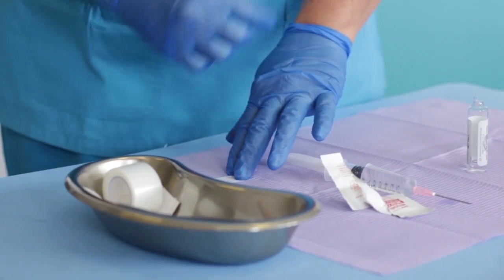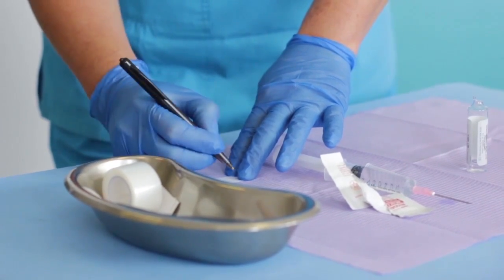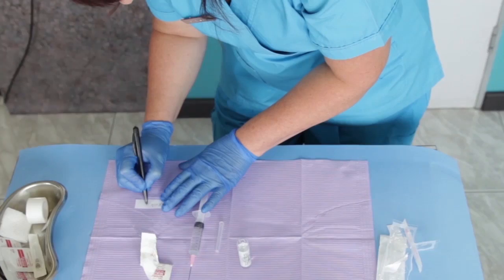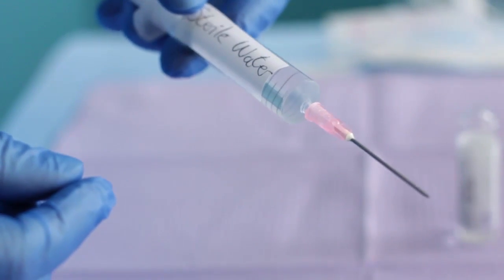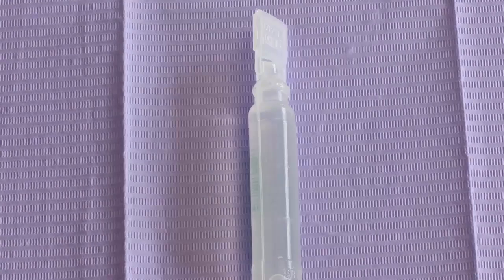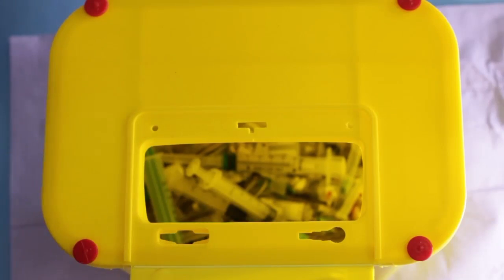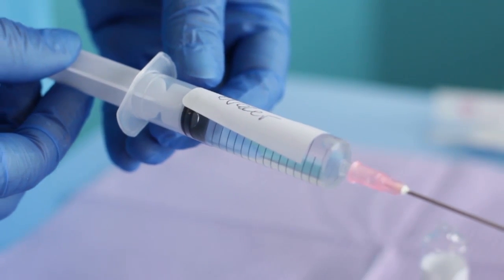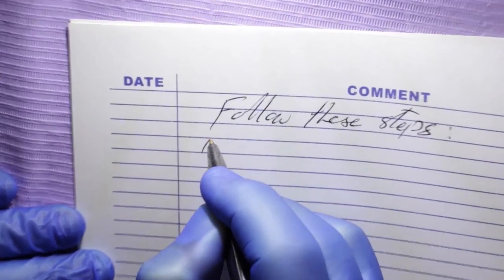In all cases when preparing syringes of different medications, or if you are not administering the medication immediately, clearly label the syringes opposite the volume markings. Write the type and concentration of medication — for instance, ketamine 1 mg per mL. You will need a 10 or 12 mL syringe with an attached 18 to 21 gauge needle, a 10 mL glass vial of sterile water or normal saline, a 10 mL plastic vial of sterile water or normal saline, alcohol wipes, a sharps container, sticker paper or a strip of strapping for labeling, and a pen. Follow these initial steps for drawing up fluid or medication from any vial.